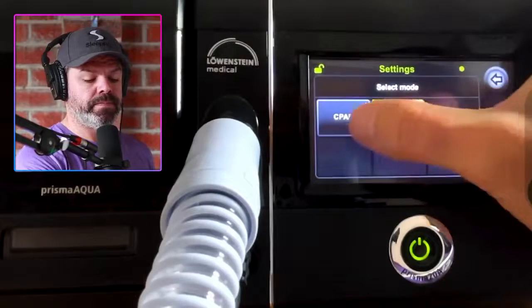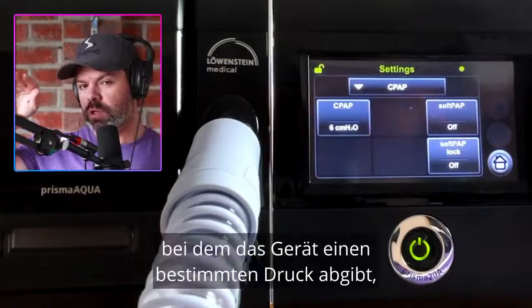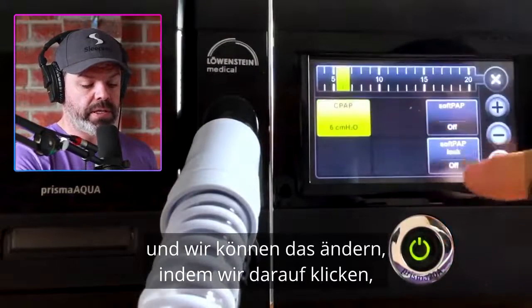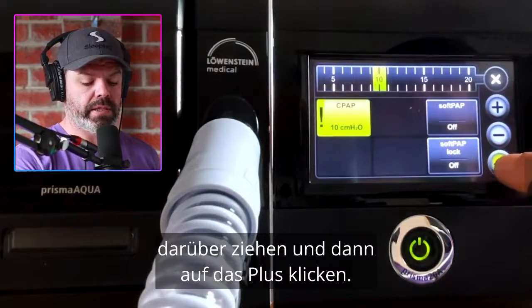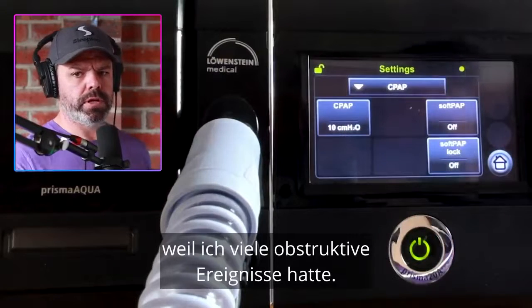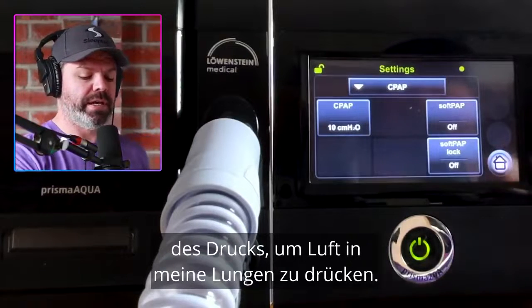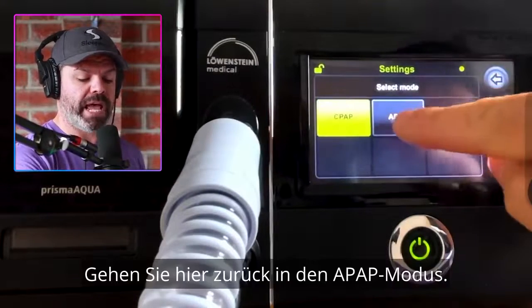Let's go to CPAP mode. So we're changing now to fixed pressure delivery, where the machine will deliver one set pressure. We can change that by clicking and dragging across, then clicking the plus. Just changed it from 6 to 10 centimeters, because I had a lot of obstructive events and my AHI was high, so I needed an increase in pressure. And once again, we can change SoftPap if we want, or get back to APAP mode.